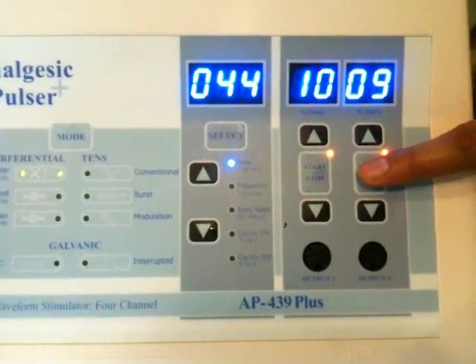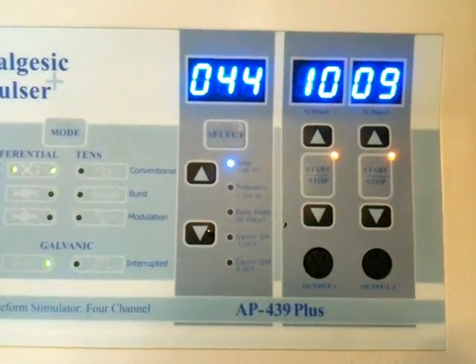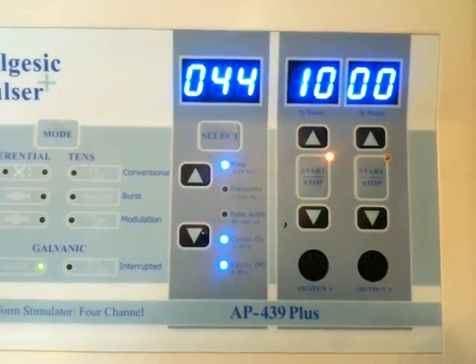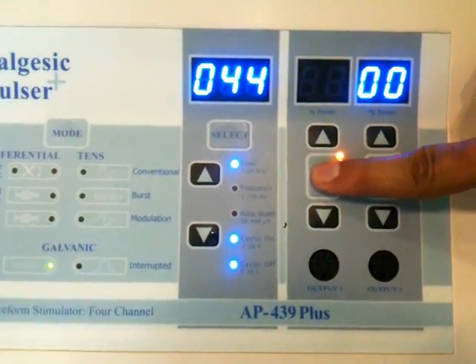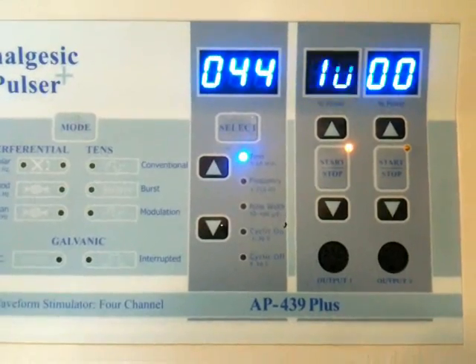Now to stop — the channel output 2 is stopped, and now output 1 is stopped.